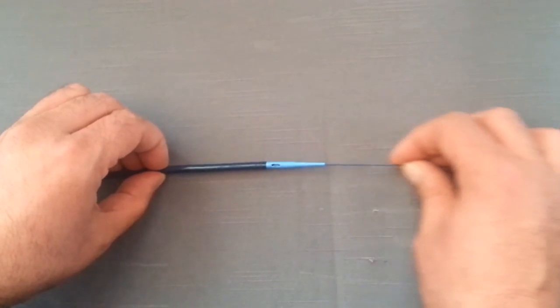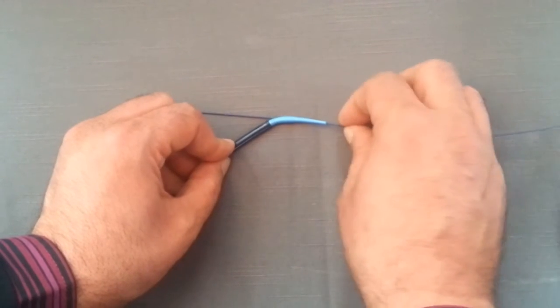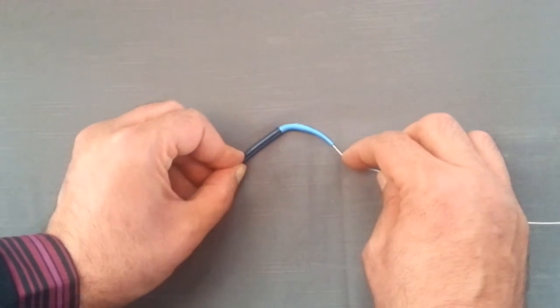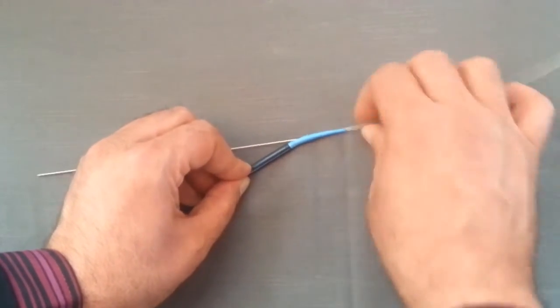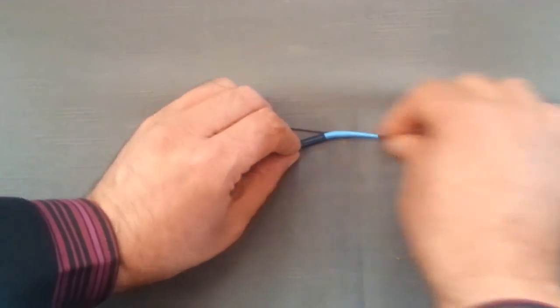In our experience, it is always possible, whether it is the stiff or the floppy tip of the guide wire. Without any difference. Also with any type or brand of guide wire.